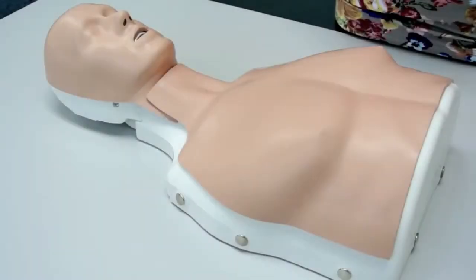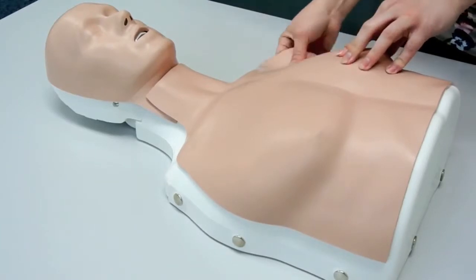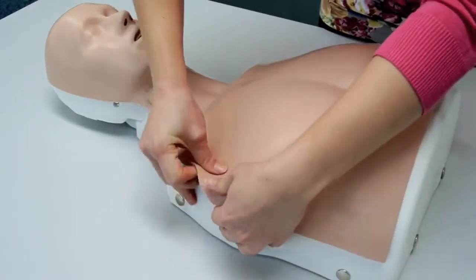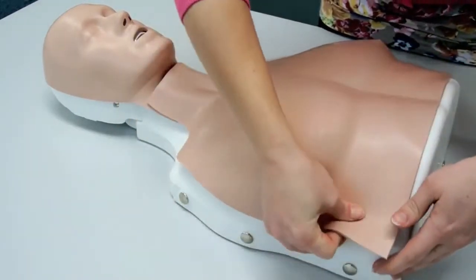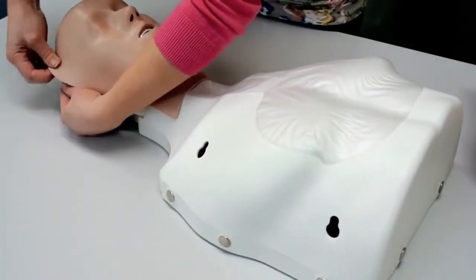The lung bags can easily be changed. First, remove the thorax skin. Second, remove the face skin.